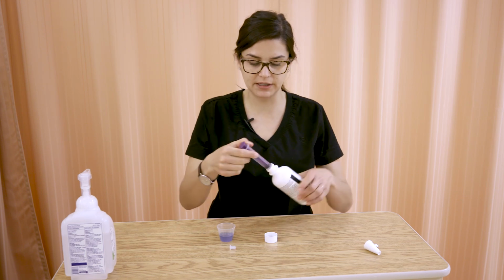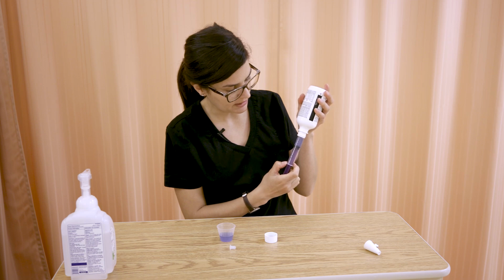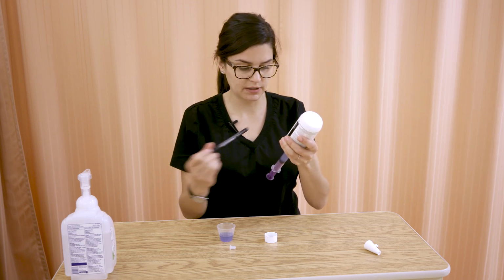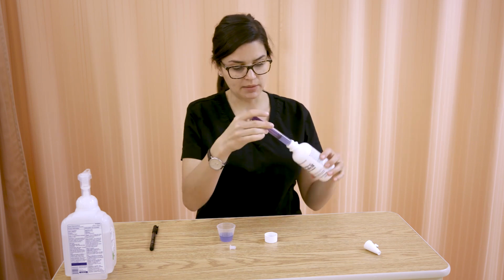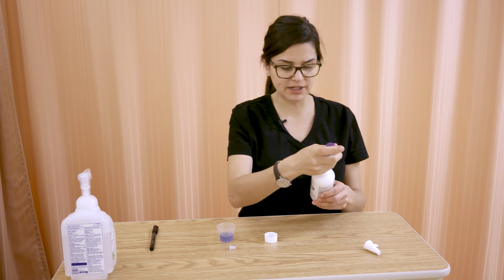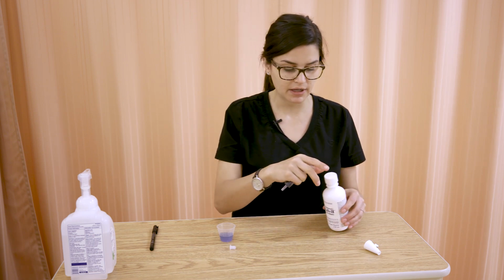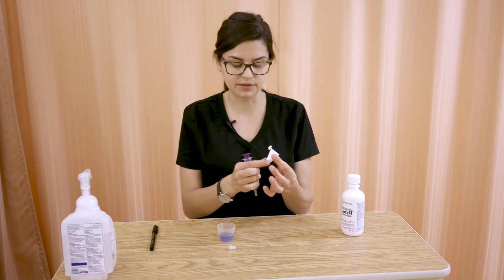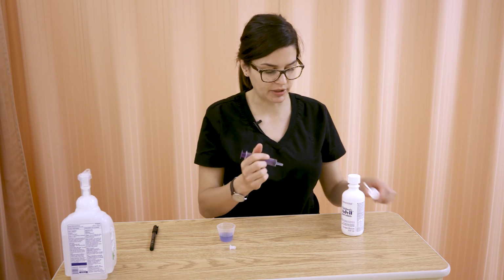So you can just stick it in there, flip your bottle upside down, and draw up, say we wanted 5 mLs, you can knock the bubbles out of there, and you can get your 5 mLs that way. So it's kind of neat, and you might see that in certain areas, something like that just stays in there. Or you might see the same idea, just a different version, but the oral syringe will stick in there when it's in the bottle.